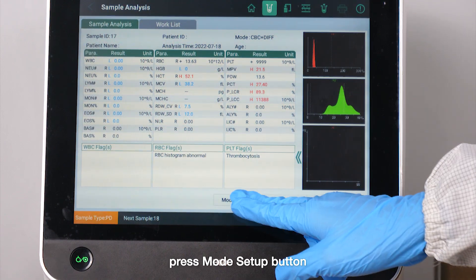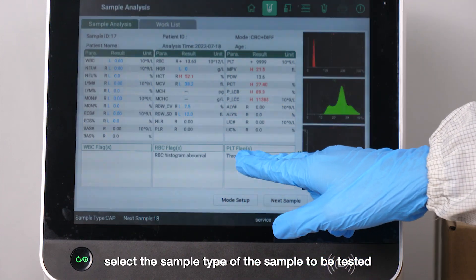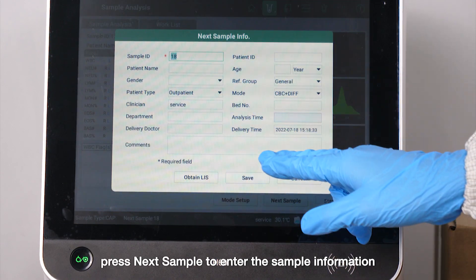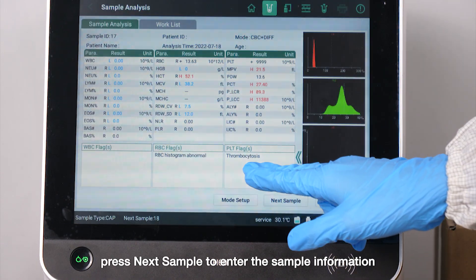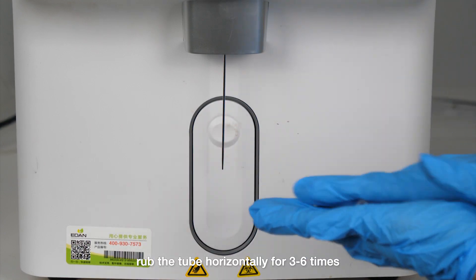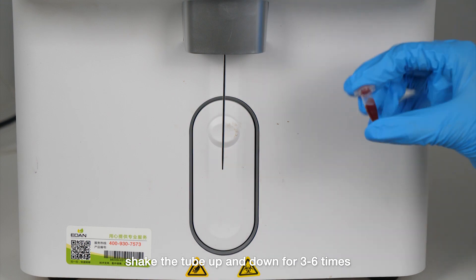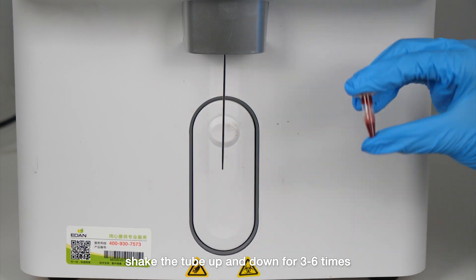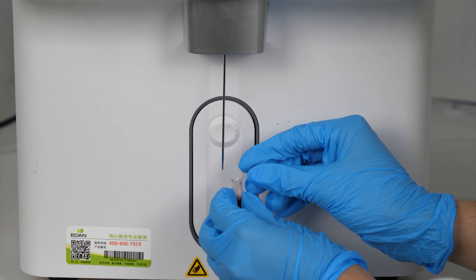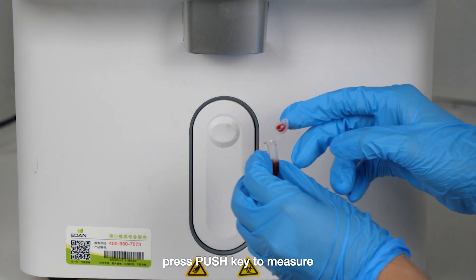Press the mode setup button. Select the sample type of the sample to be tested. Enter the sample ID. Press next sample to enter the sample's information. Rub the tube horizontally for three to six times. Shake the tube up and down for three to six times. Open the cap of the tube, put the tube under the sample probe, and press the push key to measure.